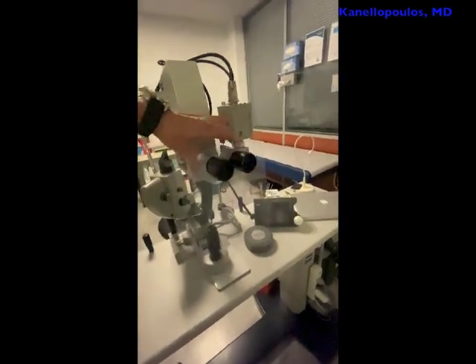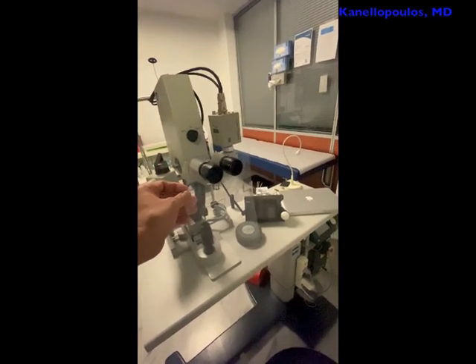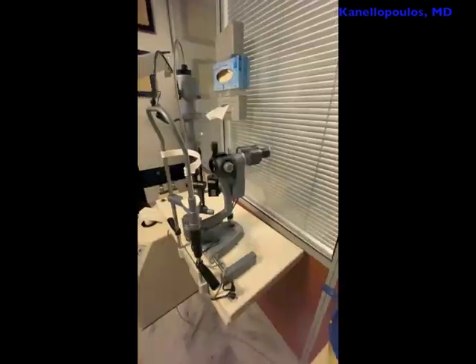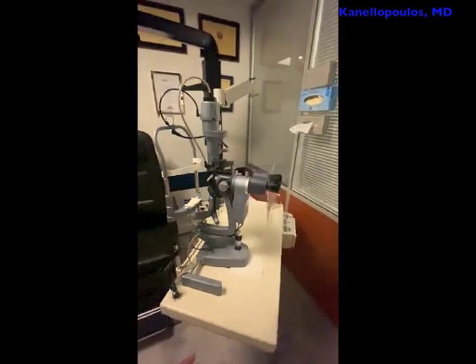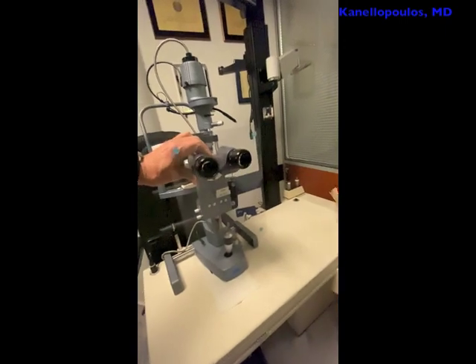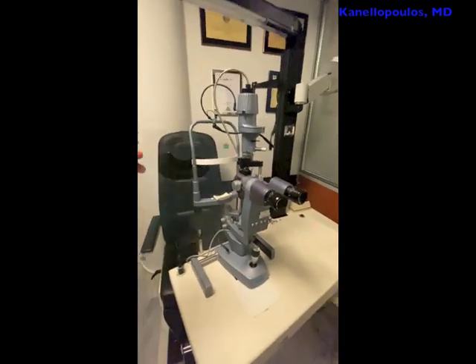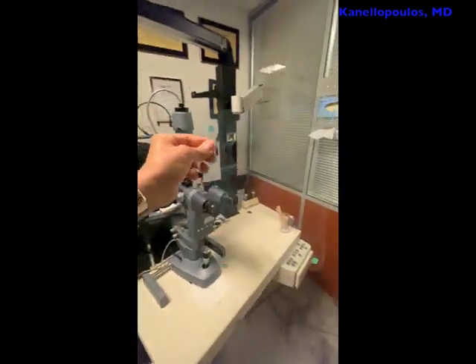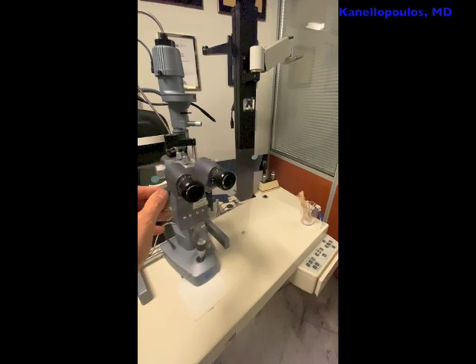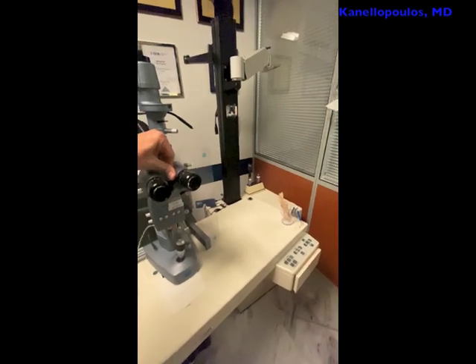You can see how easily this can come out — pretty much fit in any microscope or slit lamp. Position it in place, and then adjust the pupillary distance. We have several of these. These are the CSO slit lamp's beautiful pictures — and the same trick here, adjusting the pupillary distance and using this very easy self-made shield from a cellophane letter size sheet, a pair of scissors, and the parameters I mentioned. I'm going to narrow the pupillary distance, place our shield in place, and then adjust it accordingly.